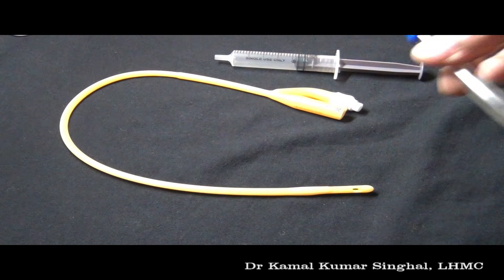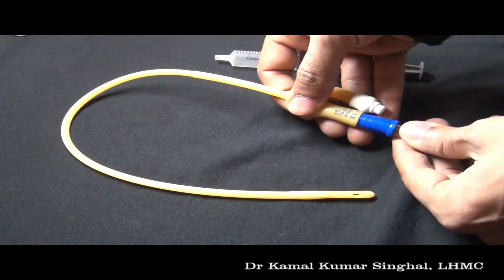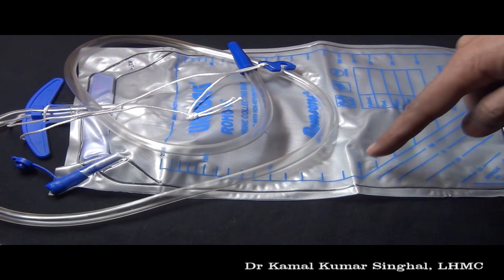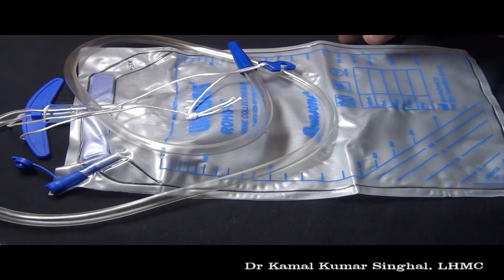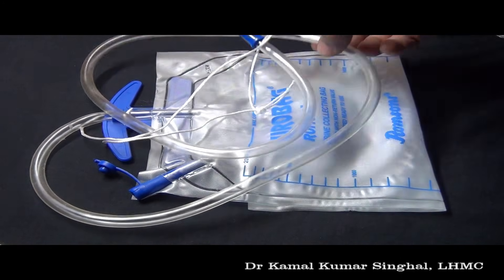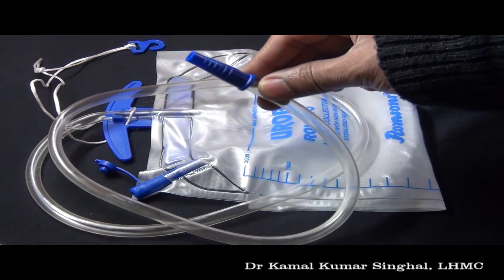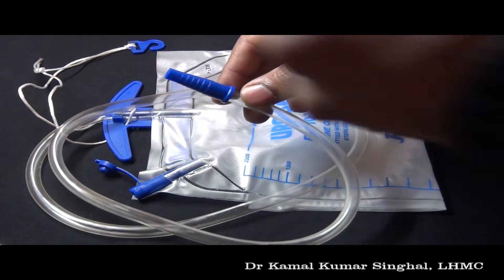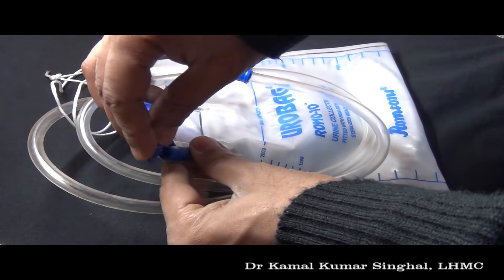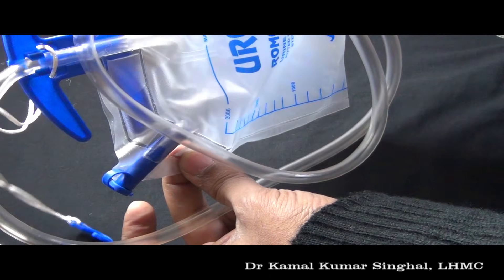The urine collection bag is connected to the urine drainage port. There are markings on the bag which indicate the amount of urine collected. The bag has a tube, and this end of the tube is connected to the Foley's catheter. The opening in the urine collection bag is to be kept closed and is opened while emptying the bag by tilting.